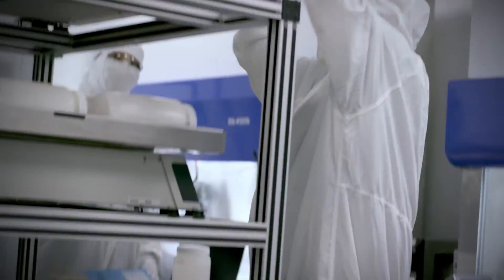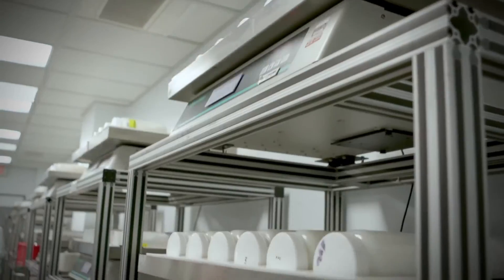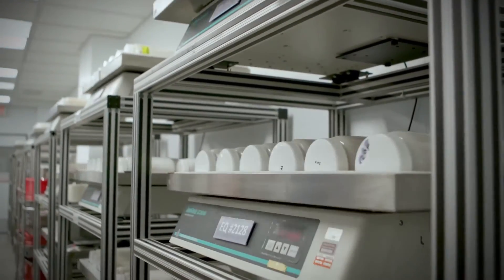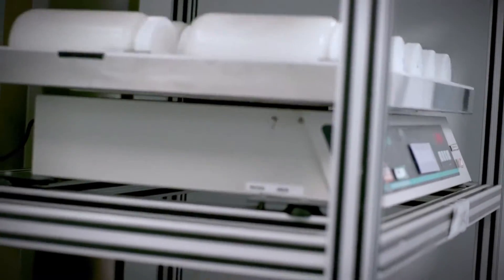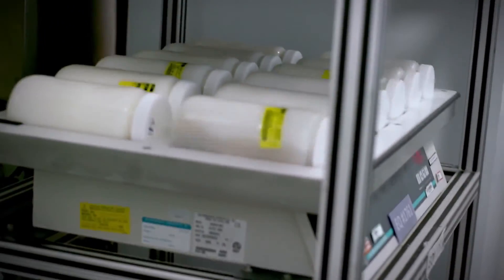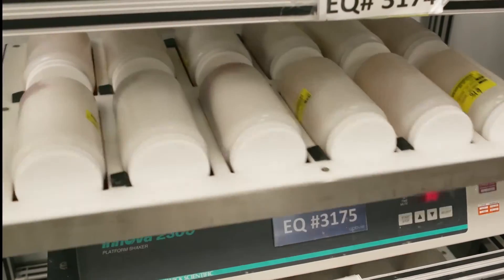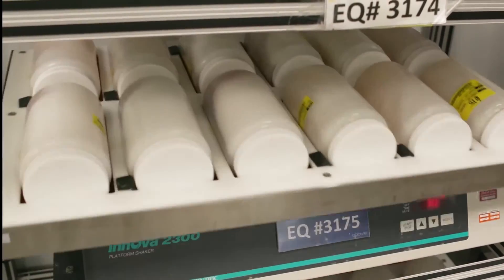Next, the tissue undergoes a series of solution washes through agitation. This de-epidermizes the tissue, removes all cellular components, and preserves the tissue for shelf life. These washes are non-denaturing to remove cells while preserving the integrity of the matrix.